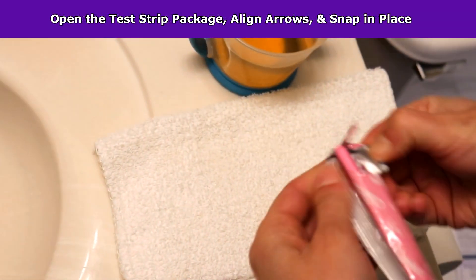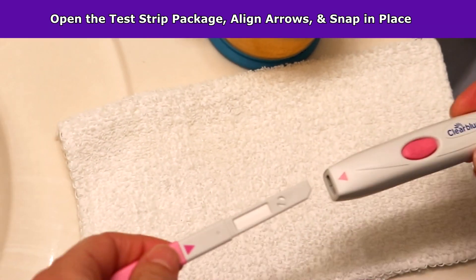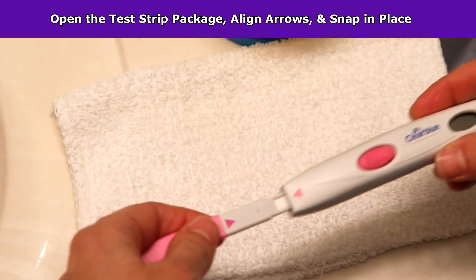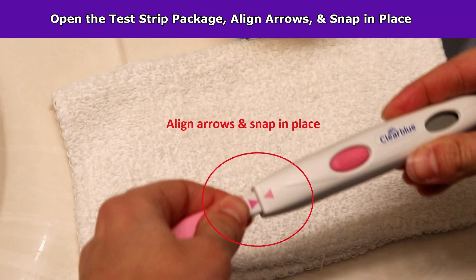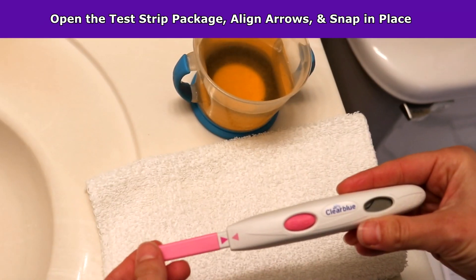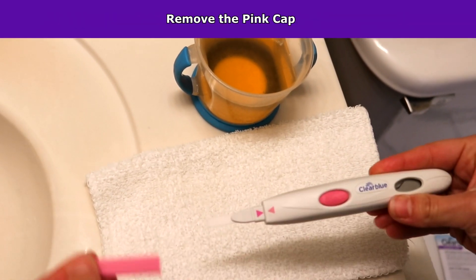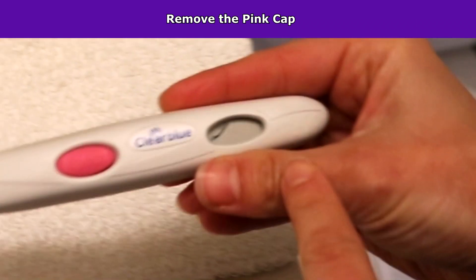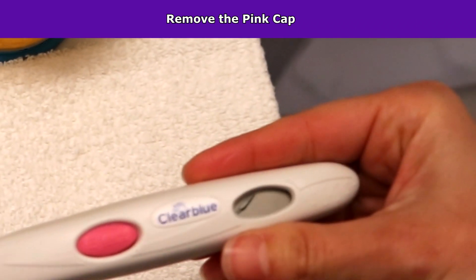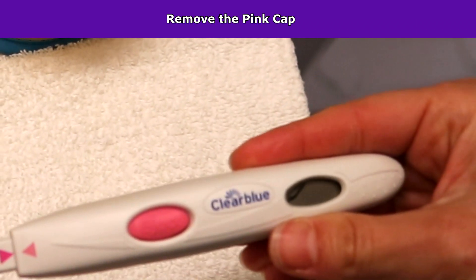Open the test strip package and find the pink arrow on the test strip, then align it with the test holder's pink arrow. Insert until you hear a click and prepare the test by removing the pink cap. You'll know it's ready when the test ready symbol appears on the screen.